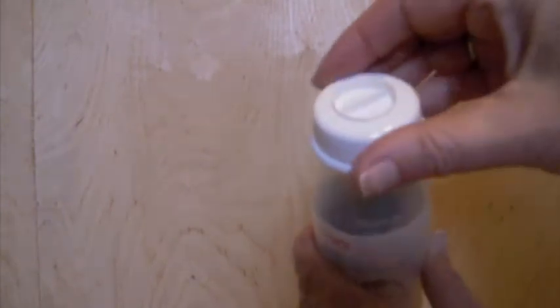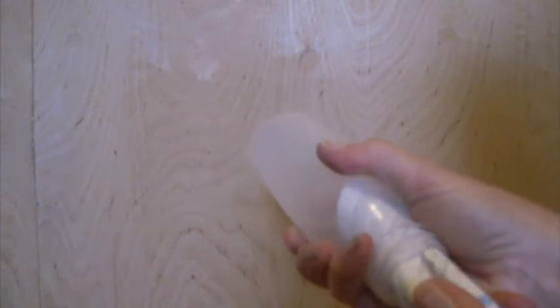When you open the bottle, you'll see it has a cap, and on top there is the travel insert, which we don't need. It comes with the special nipple and the adaptive valve. Inside the bottle are the instructions, which are in Japanese, so we're going to tell you how to use this nipple in English. Inside there is one more nipple and one more valve.